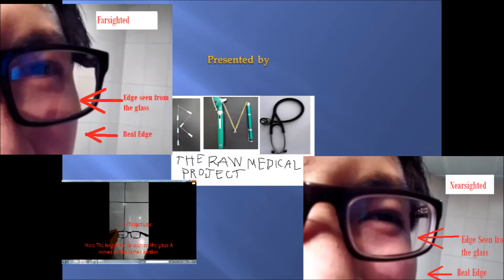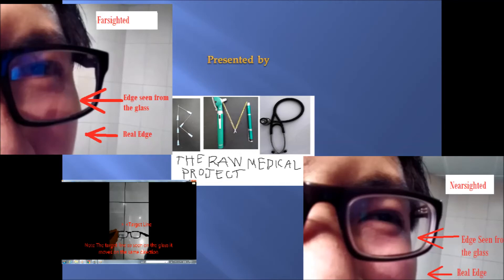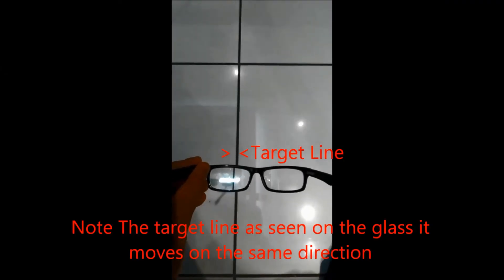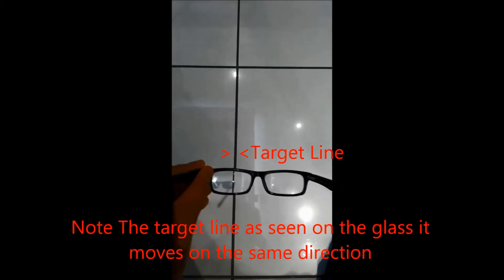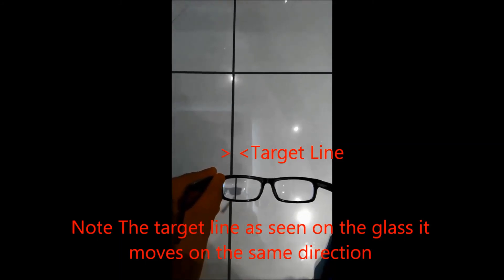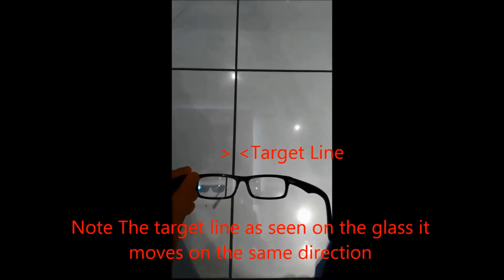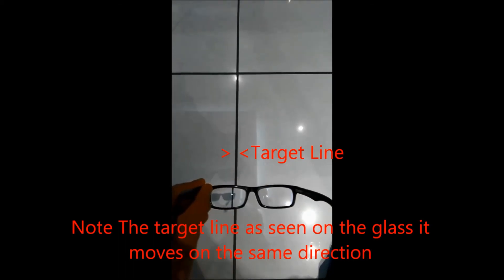The next technique can be done by holding a glass, looking at a certain reference point, then moving it left and right. On a myopic, or nearsighted glass, as you move your hands with the glass, you can see that the reference point moves toward the direction of your hands.